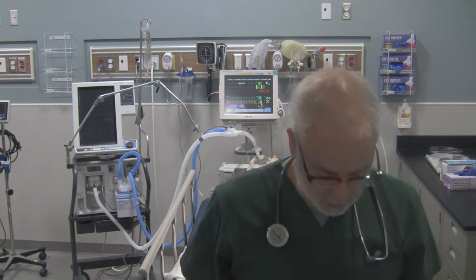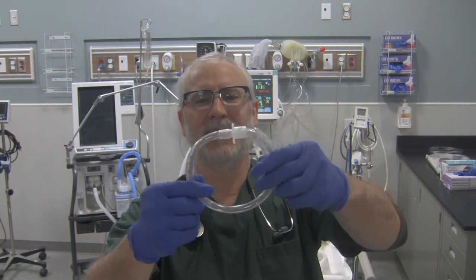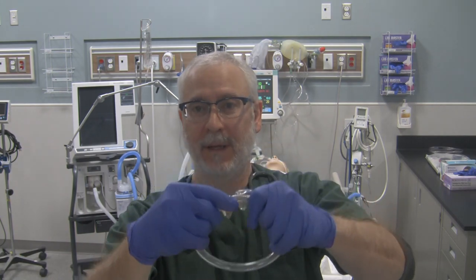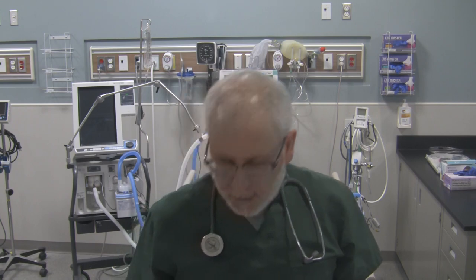The last tube I want to show you is the donut endotracheal tube — well, it's actually not really an endotracheal tube. It's a standard endotracheal tube that somebody broke the pilot balloon line off of and conformed into the shape of a donut. Just checking to see if you're still awake at the end of the video! Those are some of the endotracheal tubes you might come into contact with. When inserting the airway, know how it goes in. When maintaining the airway, know how to properly maintain it. And when it's time to extubate, know how to properly suction your patient and safely remove the tube.